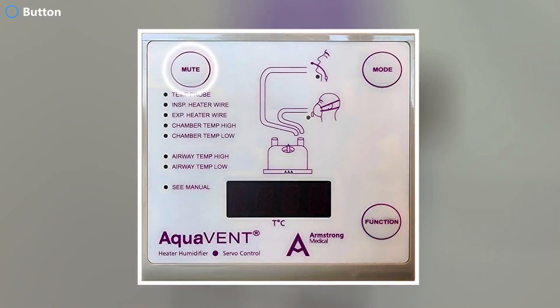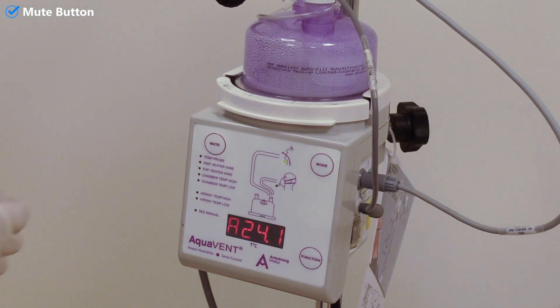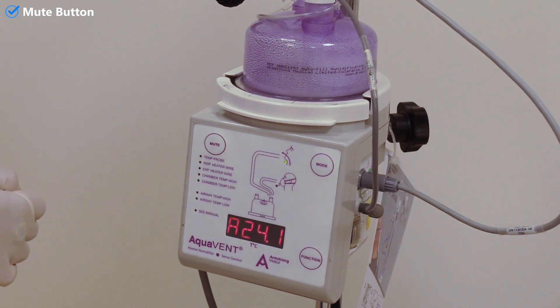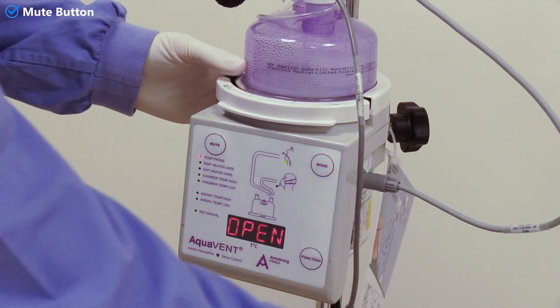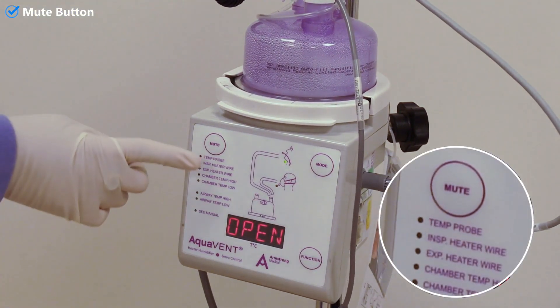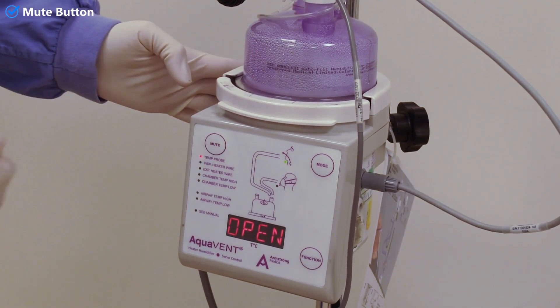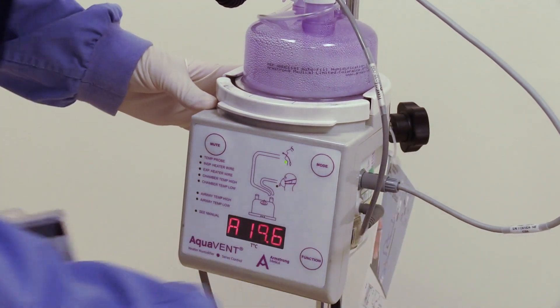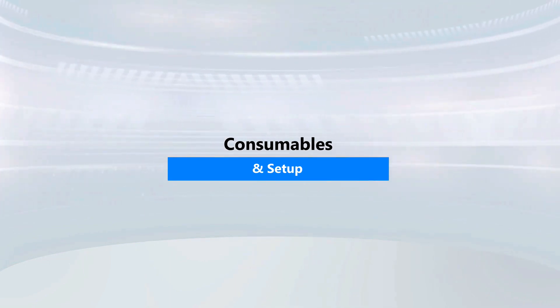Now let's talk about the mute button. It is used to silence alarms. The alarm menu is located on the left side of the device. For example, if the temperature cable gets disconnected, it will trigger an alarm and the red LED indicator will display the alarm message. You can silence the alarm by pressing the mute button and then address the fault.